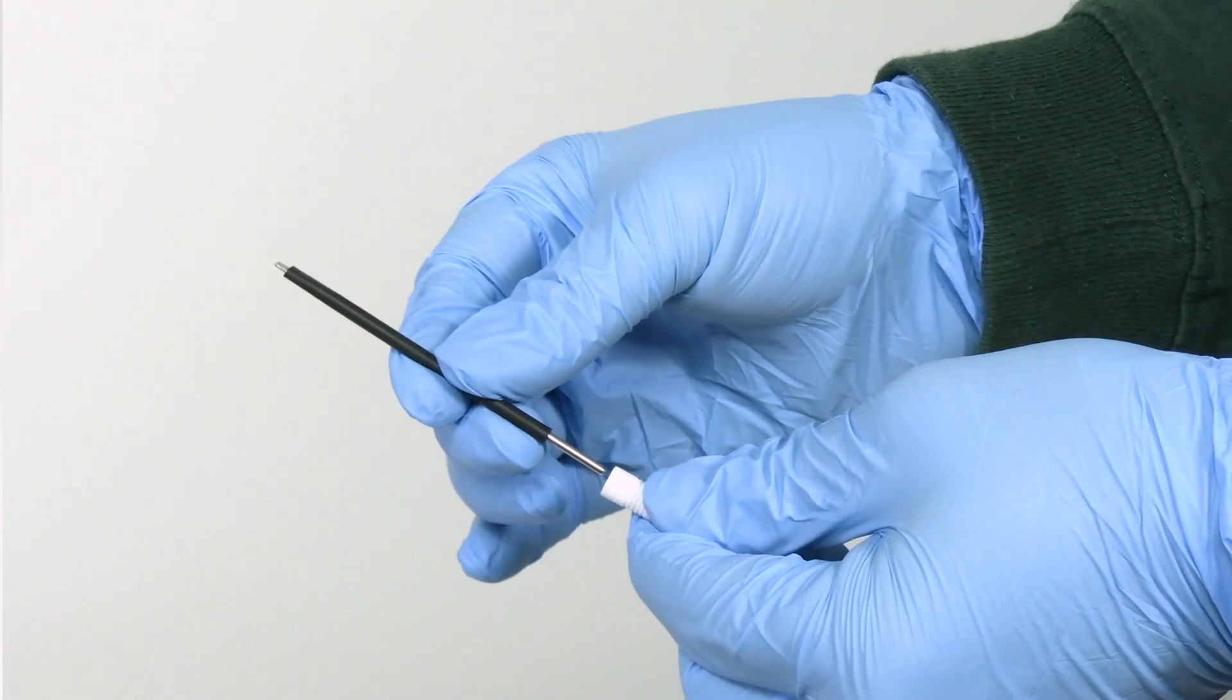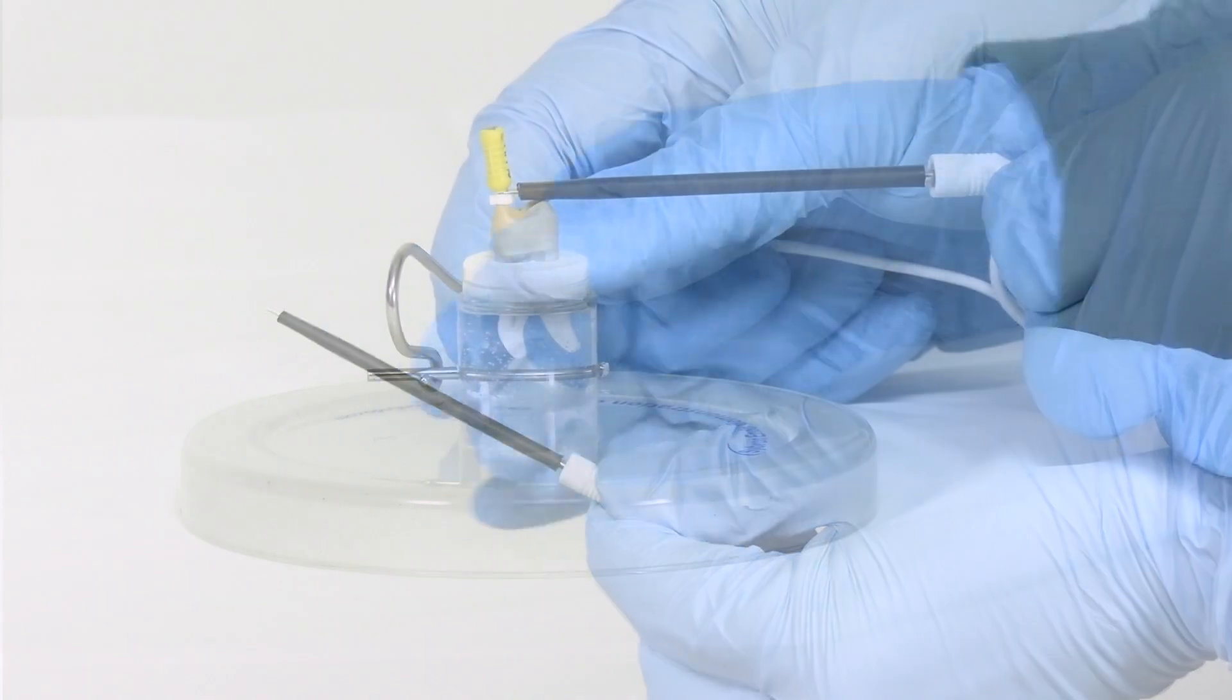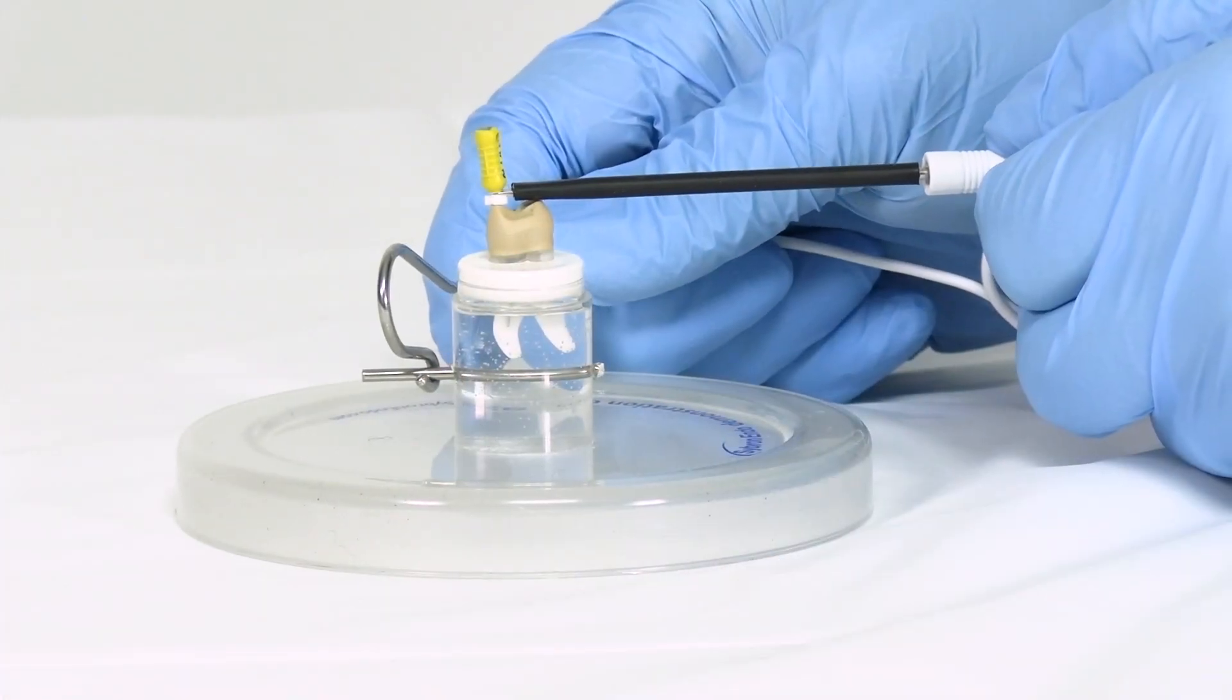It also can be used with the touch probe instead of the file clip when it is inconvenient to measure the back teeth.